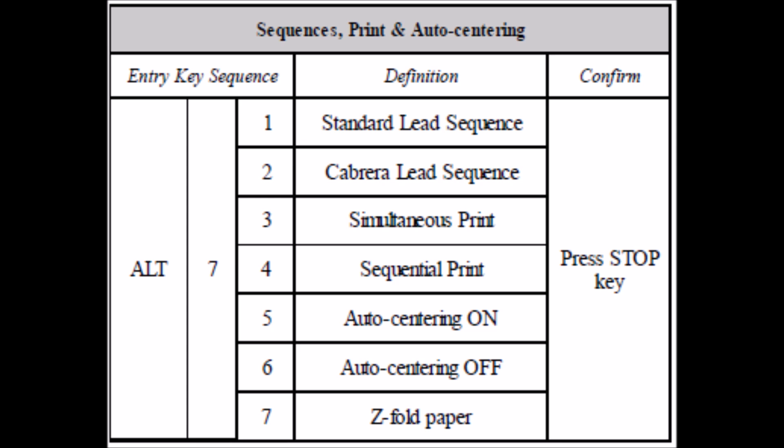To change the sequences type of print, auto centering, these are the codes that correspond.